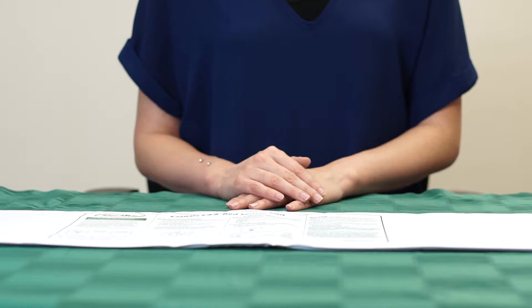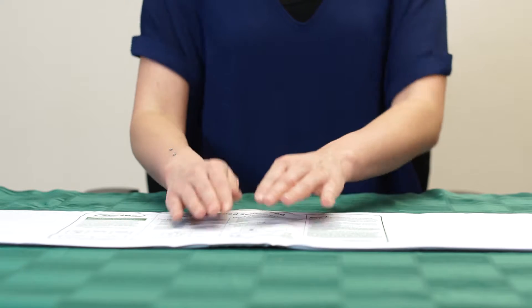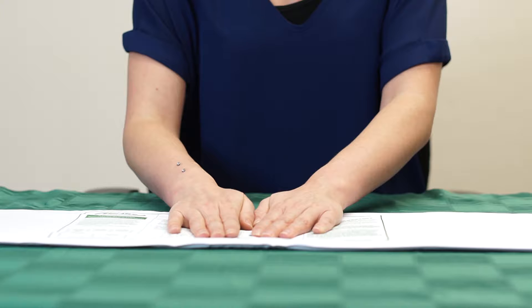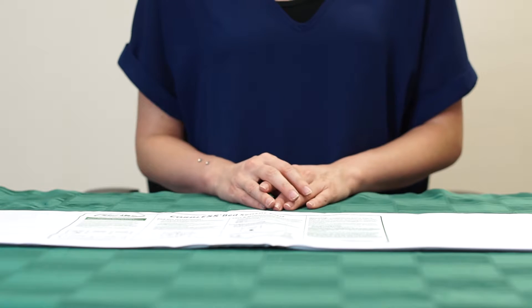To activate your pad for programming, take your pad and place pressure onto it for two seconds, then remove pressure from the pad. This will activate the pad and send a signal to the receiving monitor.